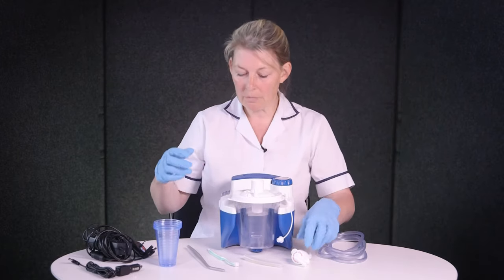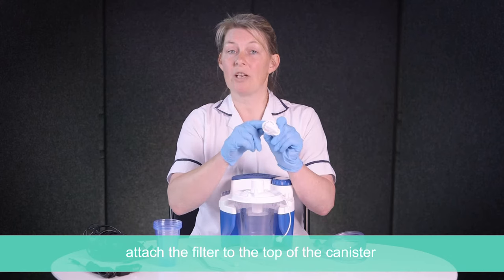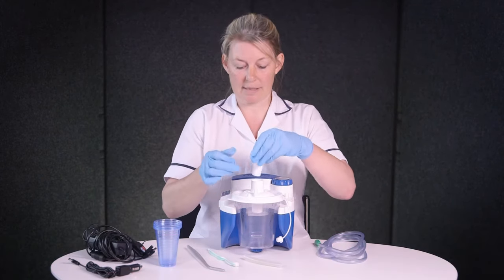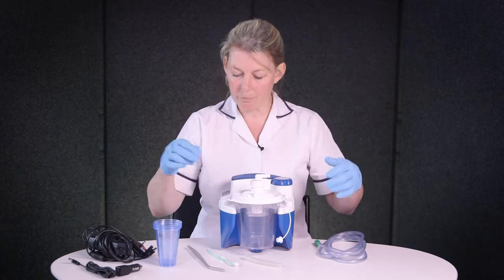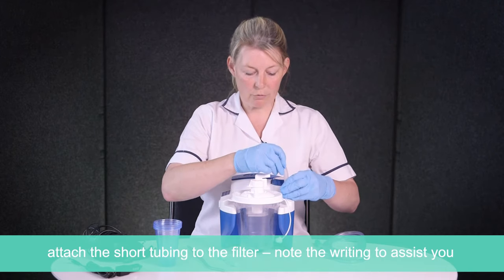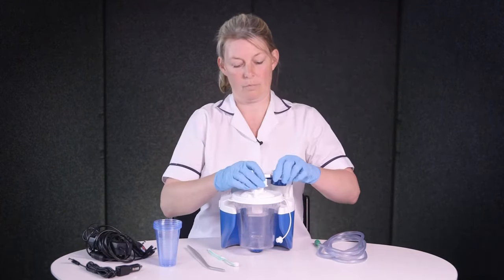So we're going to slip that one on there. The next thing to go on is a paper filter — this is changed every two weeks. It's really important it doesn't get wet, and this just sits on the top. Again, push it down firmly. Then you've got a small bit of wide tubing which just goes from the machine onto the top.